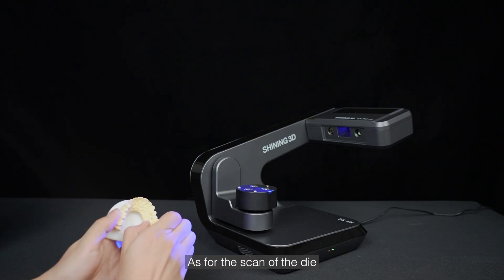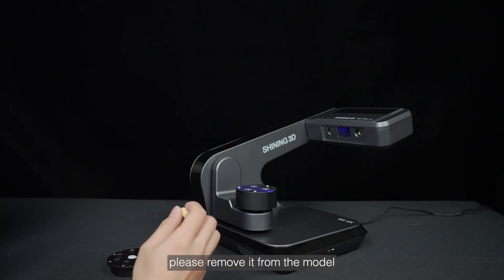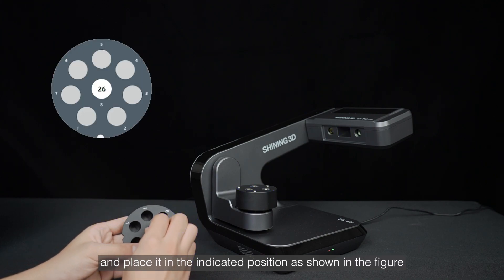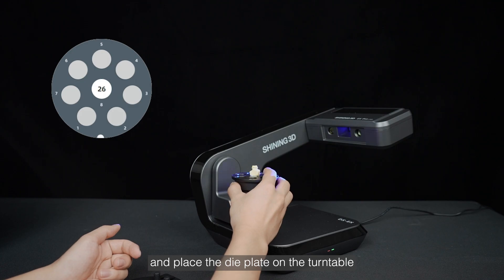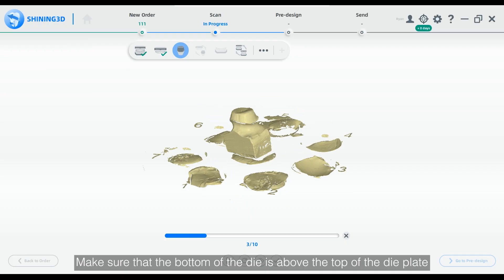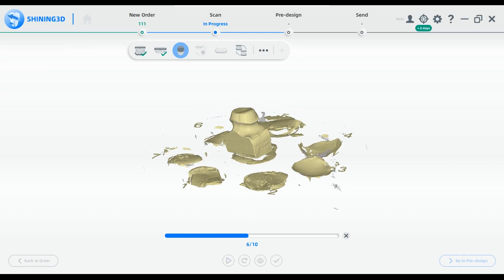As for the scan of the die, please remove it from the model, and place it in the indicated position as shown in the figure, and place the die plate on the turntable. Make sure that the bottom of the die is above the top of the die plate.